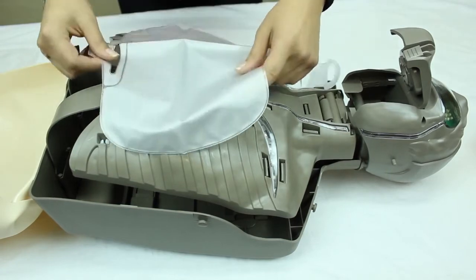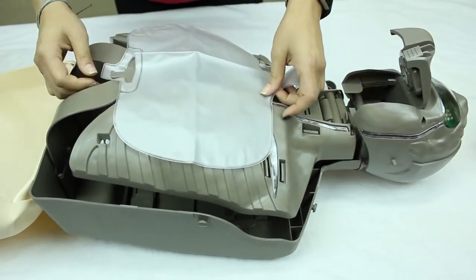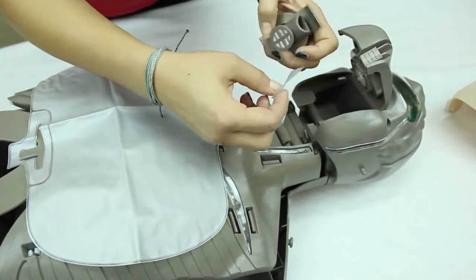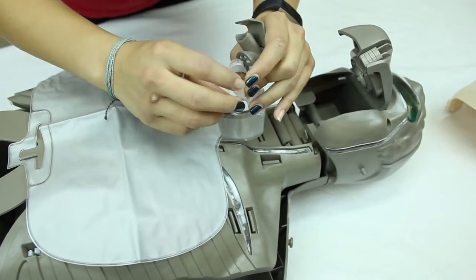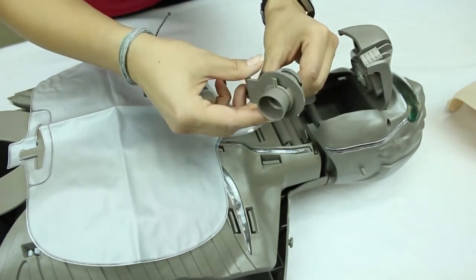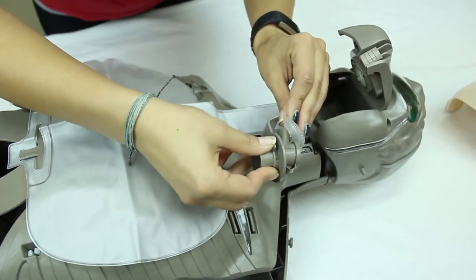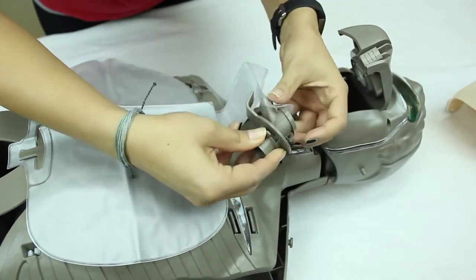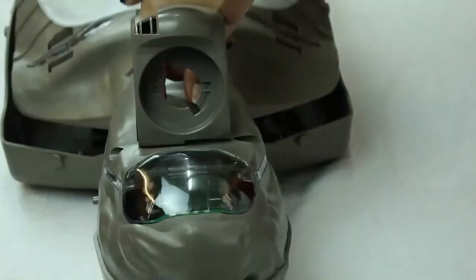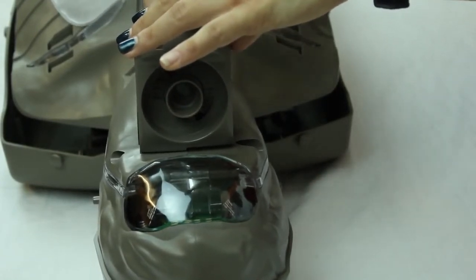To add a new lung bag, simply reattach it right here. Once the lung bag is attached, grab the mouthpiece and the airway. Open up the airway so you can attach the mouthpiece, put it on and pull it over, then place the mouthpiece back in the right slot and turn it to the right.